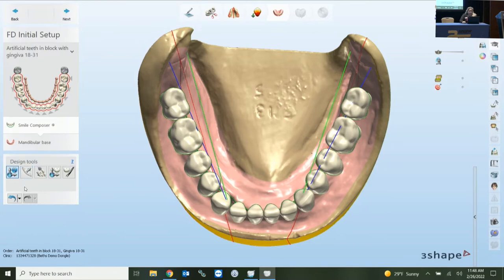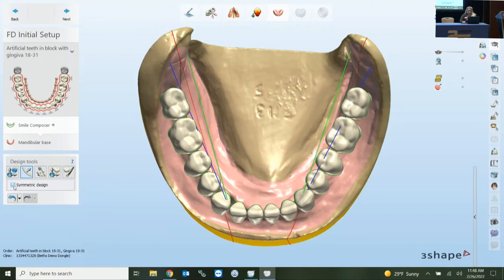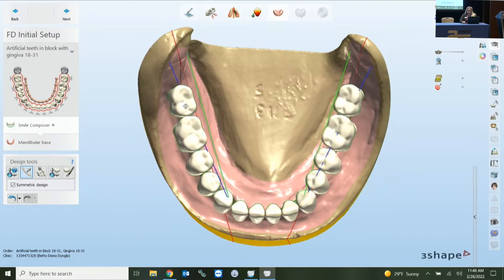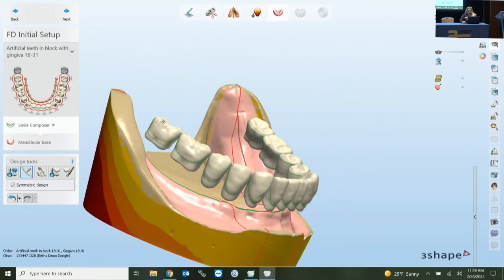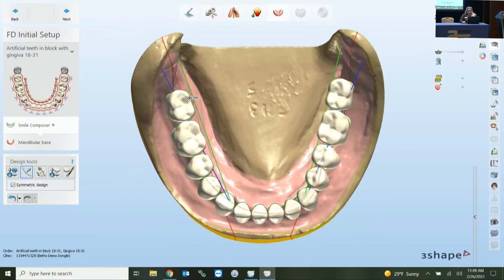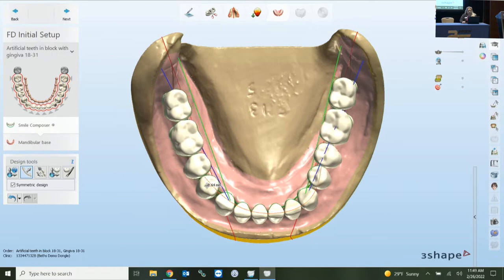We have the option to click teeth and move them, and also to change things symmetrically by checking the symmetrical box. As you grab certain teeth, they move in unison. I included second molars in the case setup specifically to show you how to remove them — you can only remove them when in the individual step. The second molar pivots based on the first premolar, while the first premolar performs a complete static movement.